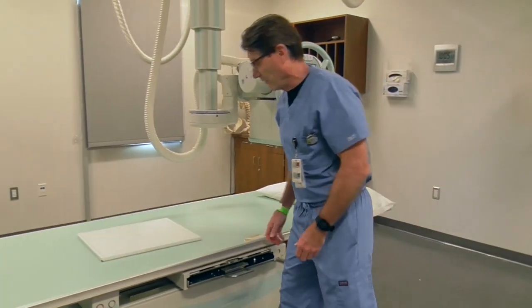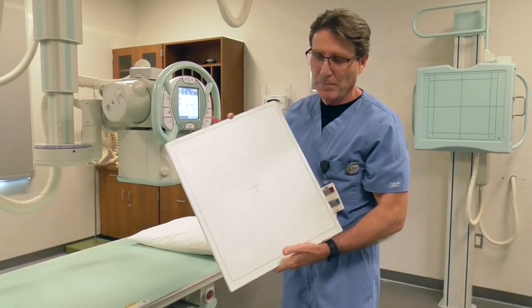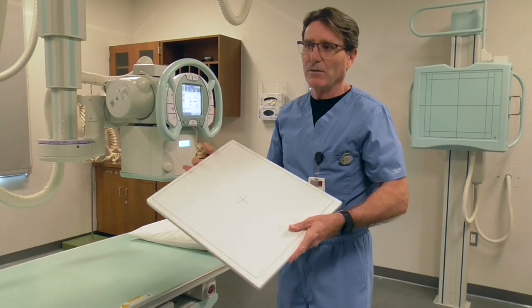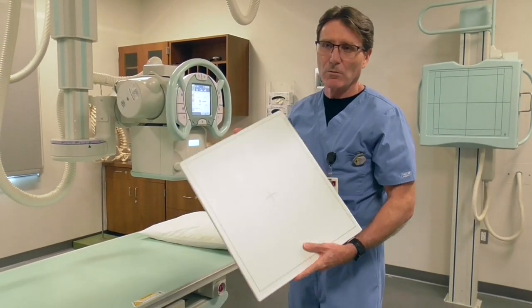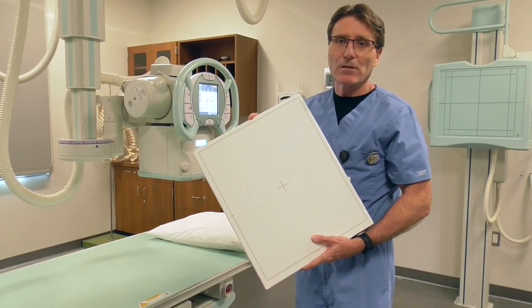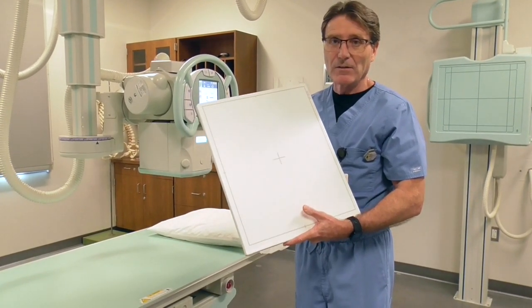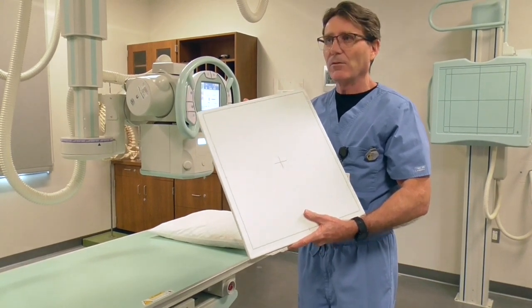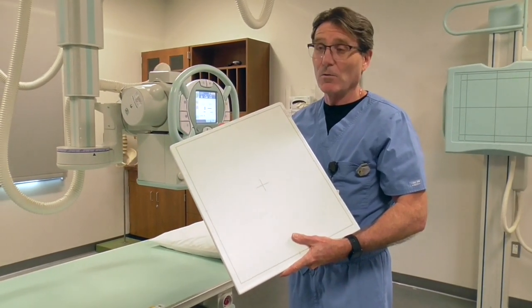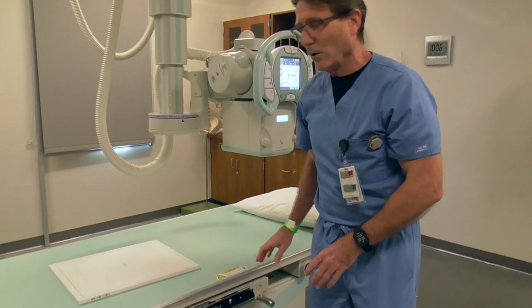The next part of the x-ray system is the image receptor. This is what we refer to as an image receptor. The size here is 14 by 17. They come in multiple sizes depending on the institution, but most of the time you work with one that's either 14 by 17 or perhaps 16 by 16. This is taking the place of radiographic film. The image is captured inside this and sent by Wi-Fi over to your monitors. There is no more film.